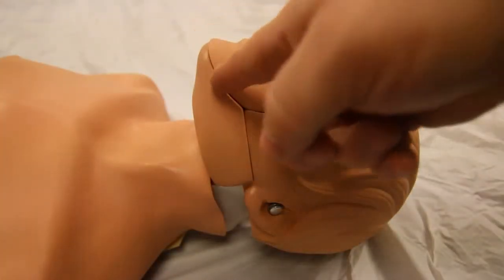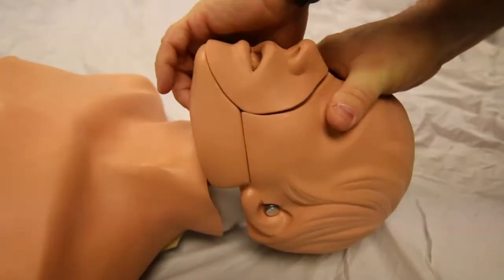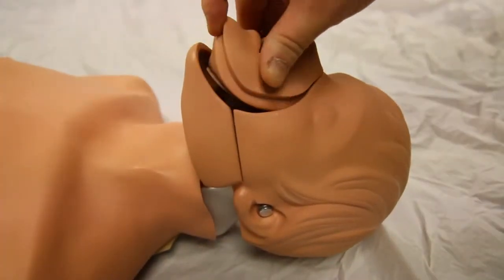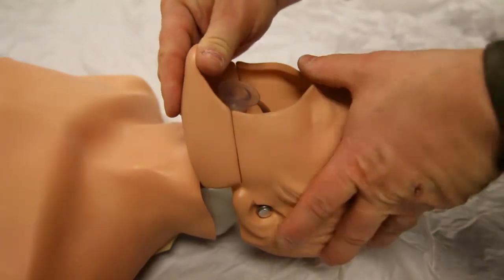The removable mouthpiece and jaw with jaw thrust. The mouthpiece can be replaced and cleaned. Note the recess of the retaining ring and the range of jaw thrust.